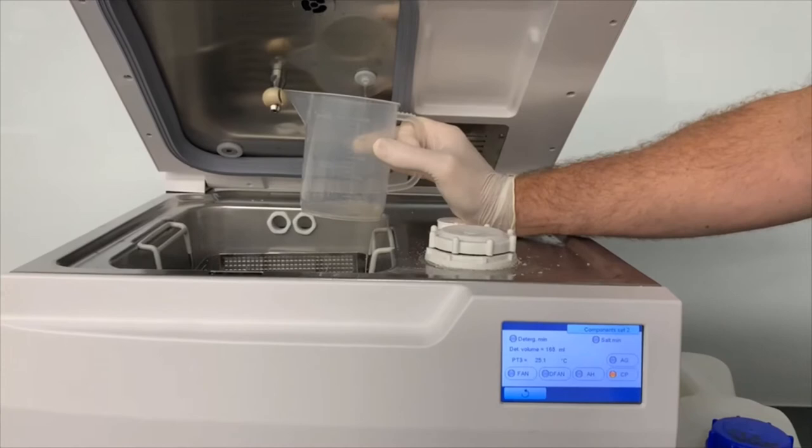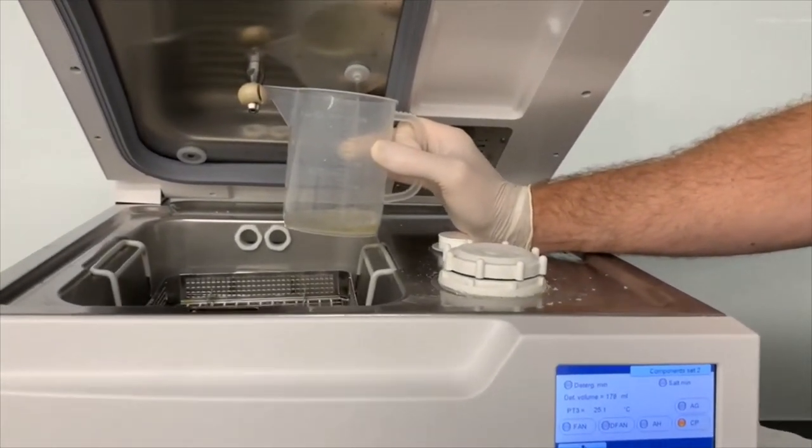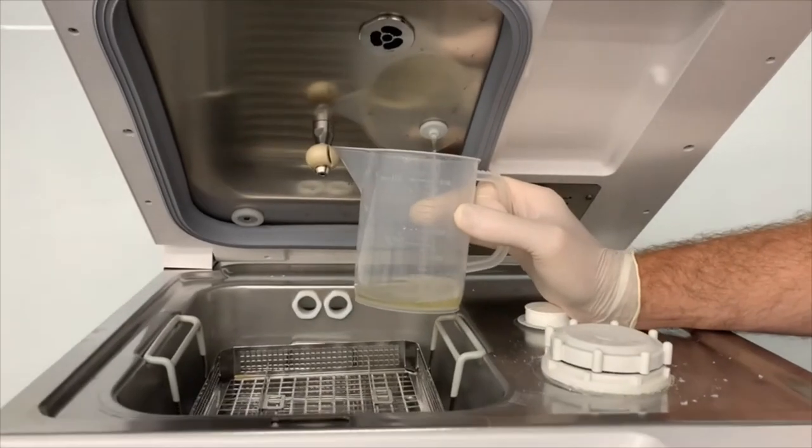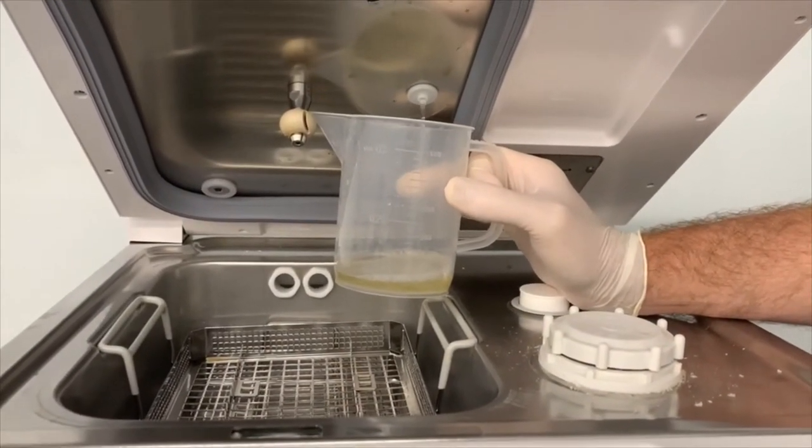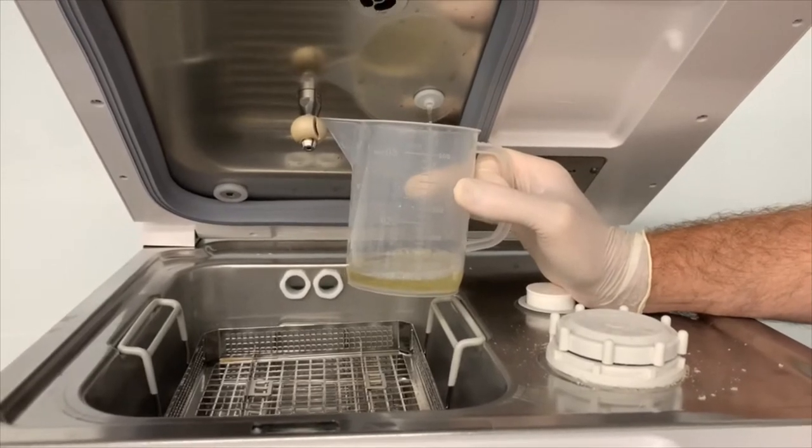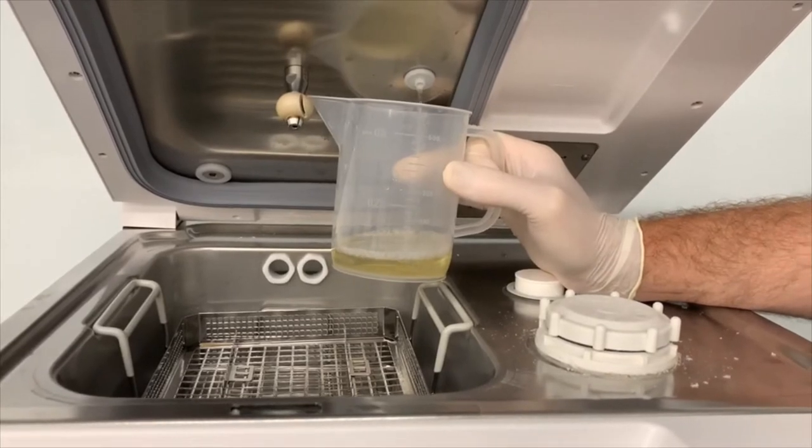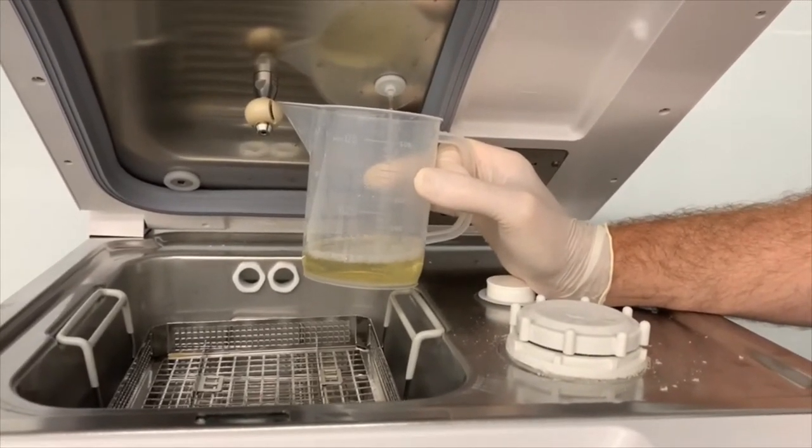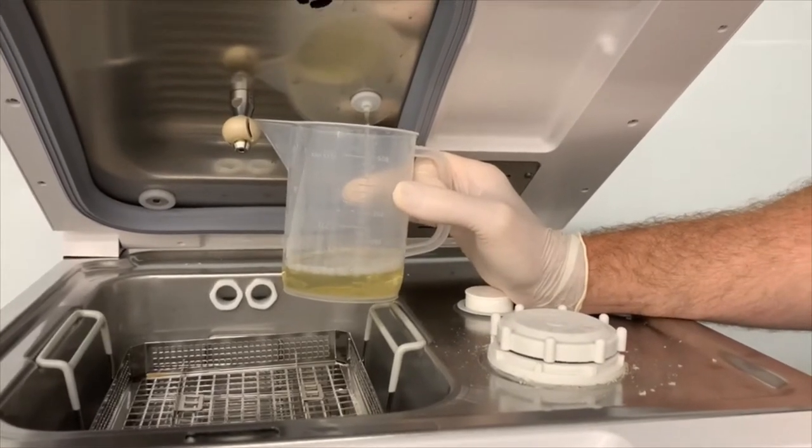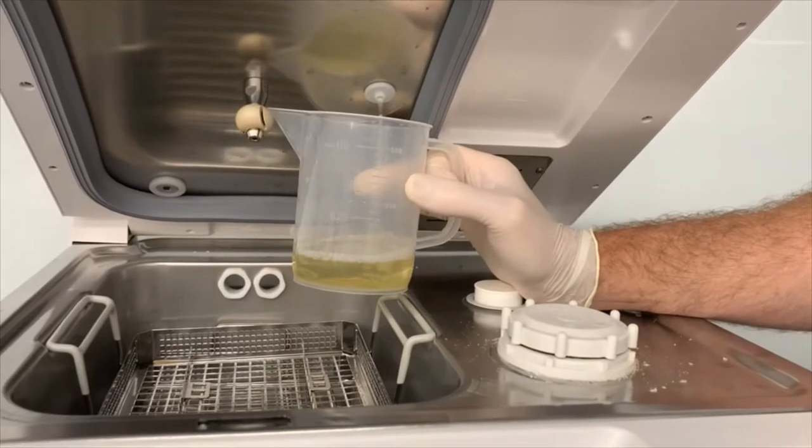So you may be able to hear that. It's just running all that chemical out of the reservoir. It holds about 900 ml in total when it's very full. When it's empty, you'll hear it making a really grumbling sound when it starts pumping air rather than liquid. And at that point we can turn the chemical pump back off and replace it with warm water.